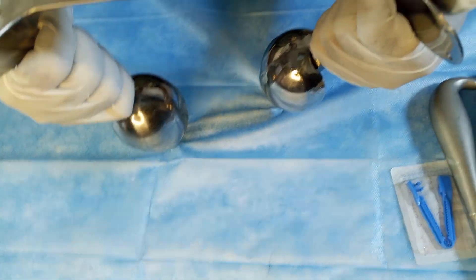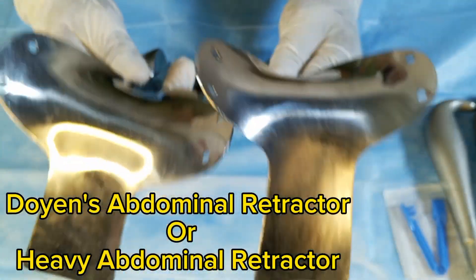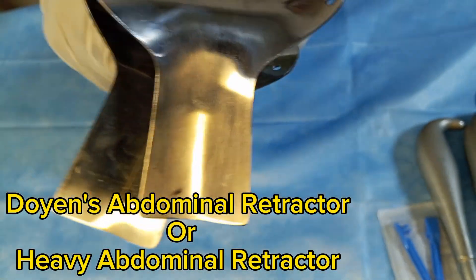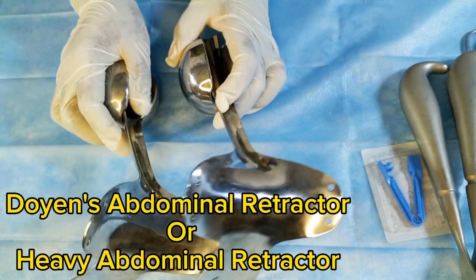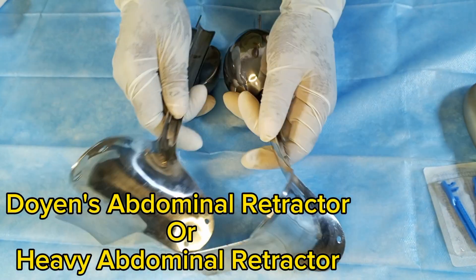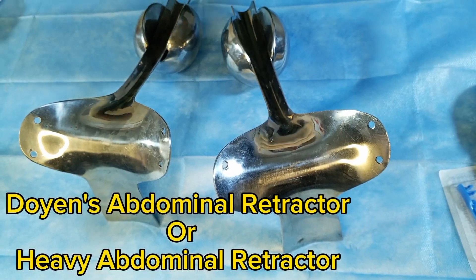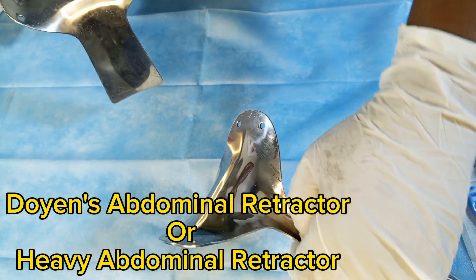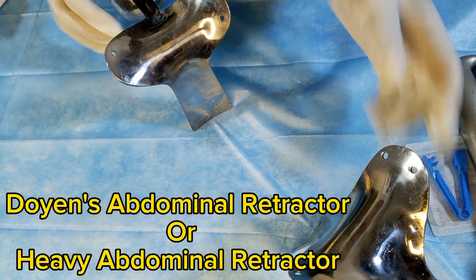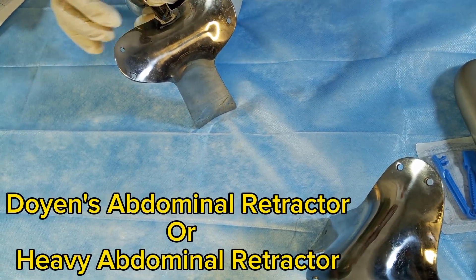These are called Doyen's abdominal retractor, also called heavy abdominal retractor — it is indeed very heavy. It is commonly used to hold back the abdominal wall during surgeries such as laparotomies or caesarean sections. When the abdomen is incised, the assistant holds one side and the surgeon pulls the other, and because of its weight it helps retract the abdominal wall to allow easy access to the abdominal contents.